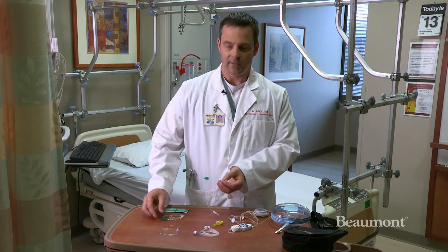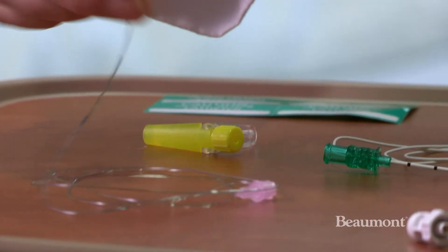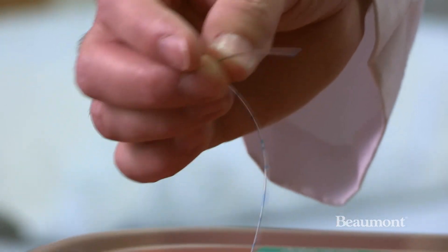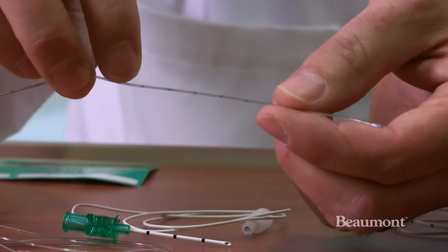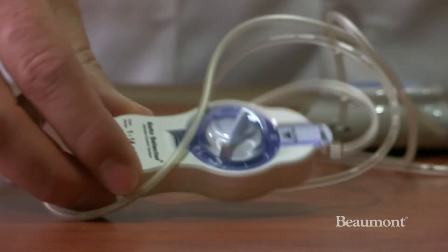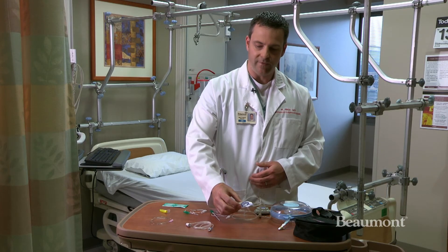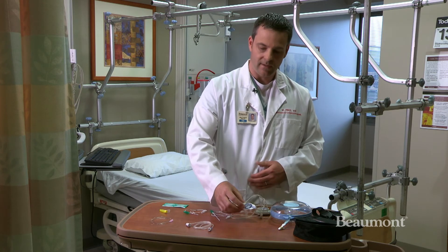What we do is use the catheter, which is what actually stays inside of the patient after surgery. It's very fine wire and only goes under the skin just a few centimeters. And then you have the pump with an adjustable dial that we can use to change the rate of the infusion and adjust it as necessary based on how you're doing.